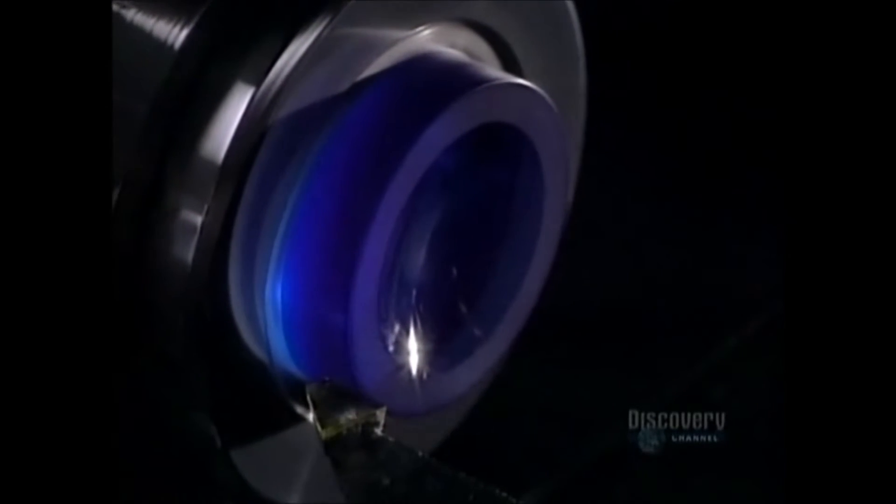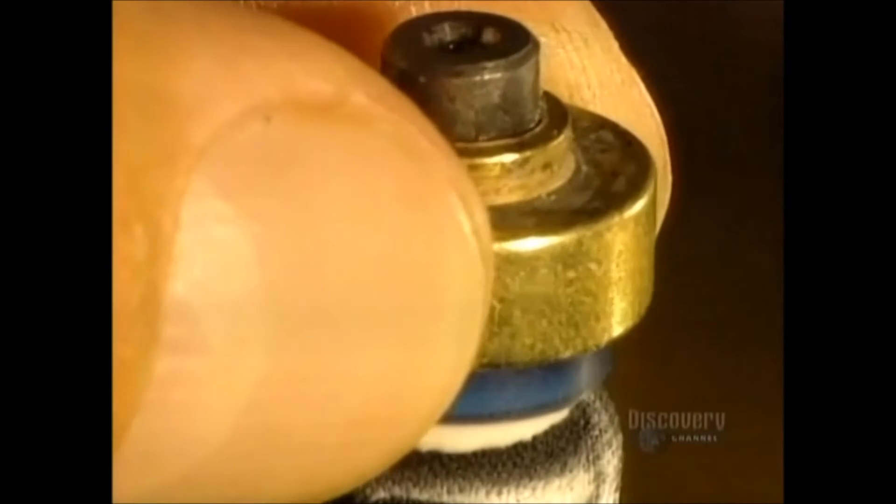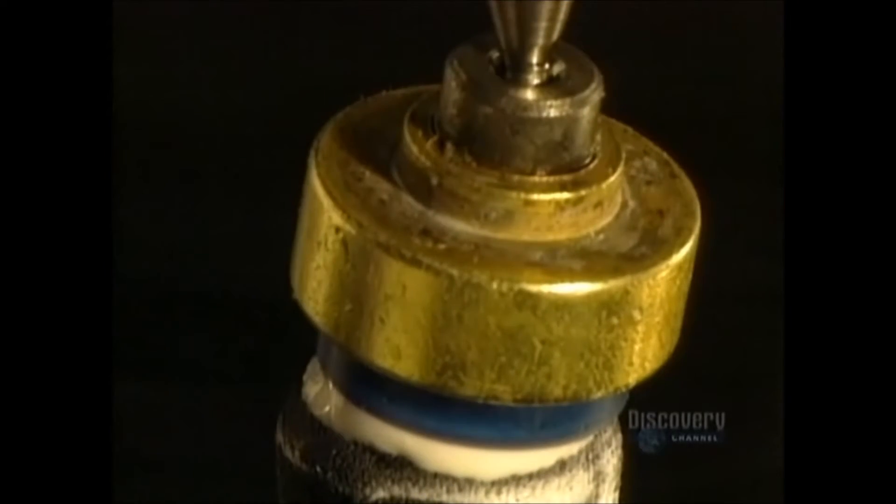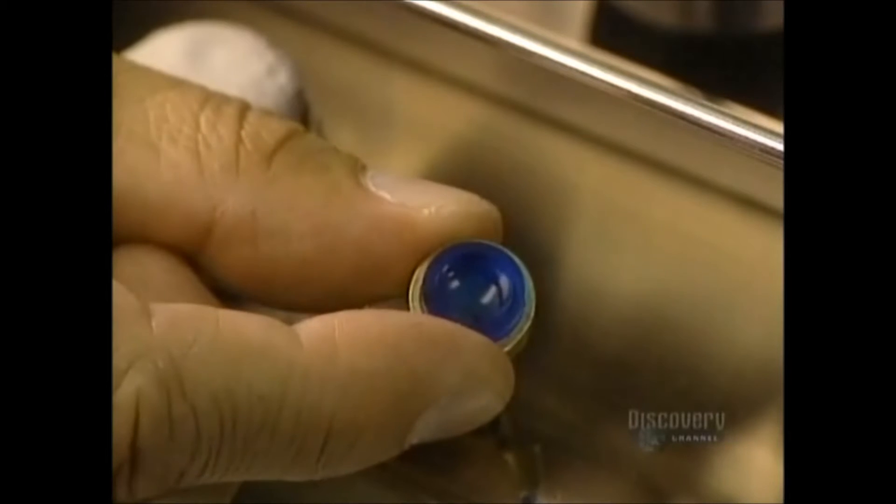It shapes the inner surface, the part that touches the cornea. It must be free from any abrasion and imperfection and is polished with a super fine abrasive paste. Polishing is a crucial step because it assures excellent comfort and perfect vision.